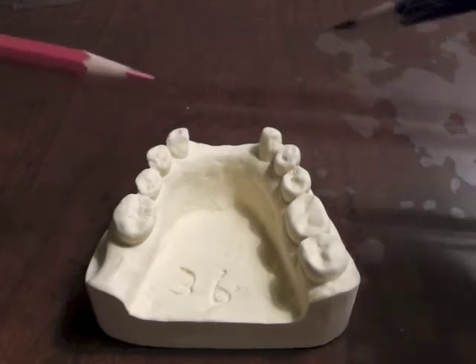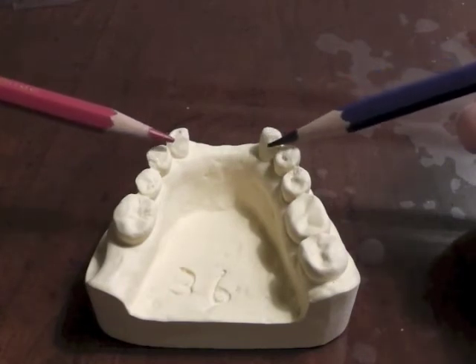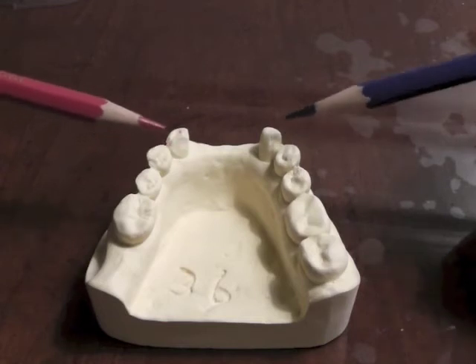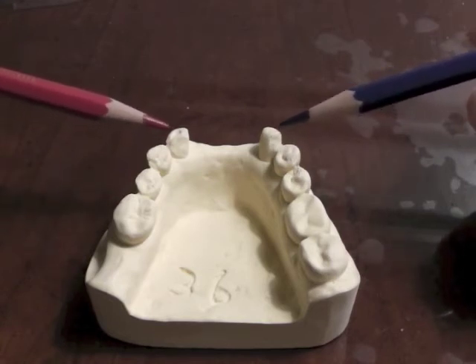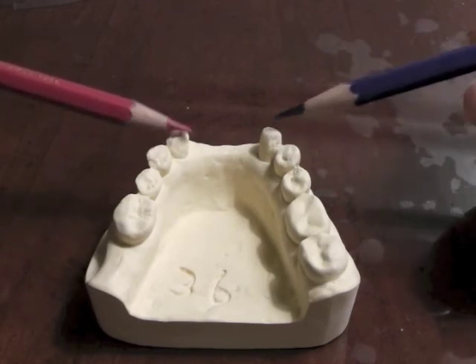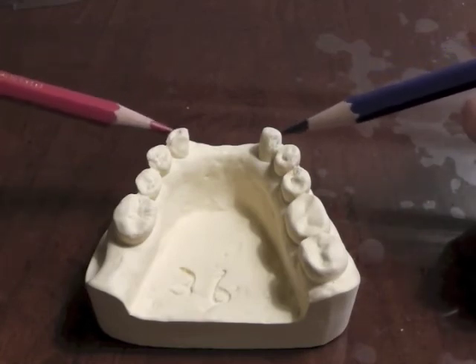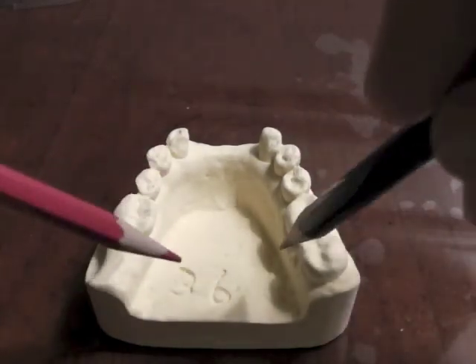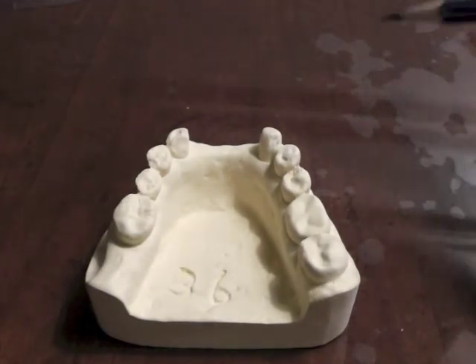On a mandibular canine, we don't have very thick enamel in this area. Therefore, on the mandibular canines, we choose to place a distal incisal angle rest. The reason we place it toward the distal is that it's a little less visible because it kind of hides behind the curvature, and it doesn't look as bad as if we would come up here with a mesial rest. So we're going to look for retention here and here, and back here, and that's where we will proceed with our survey.